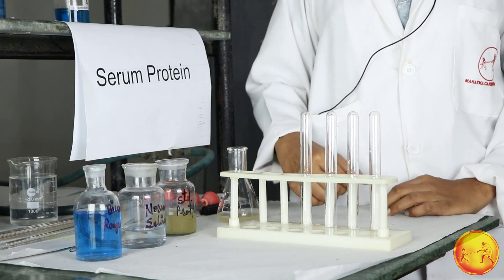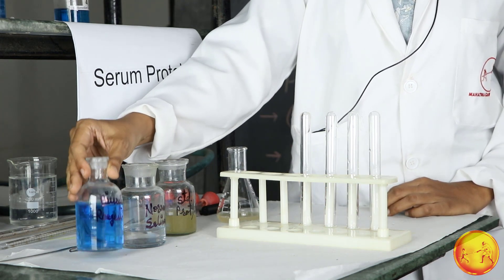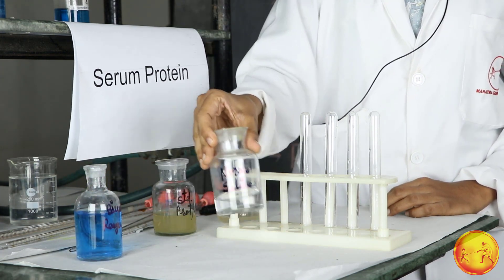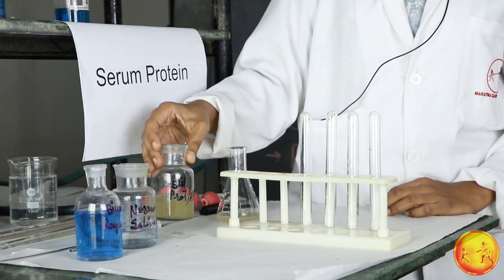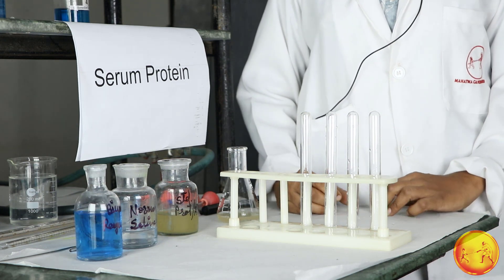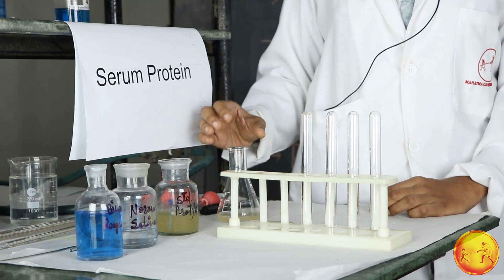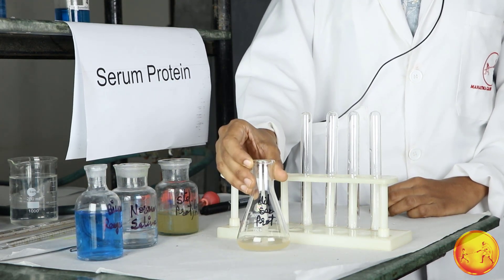Now we will see the procedure for estimation of serum proteins. Reagents required are Biuret reagent, normal saline, and standard protein solution. We have to prepare diluted protein by taking 0.2 ml of serum with 3.8 ml of normal saline. So we have taken this diluted serum.